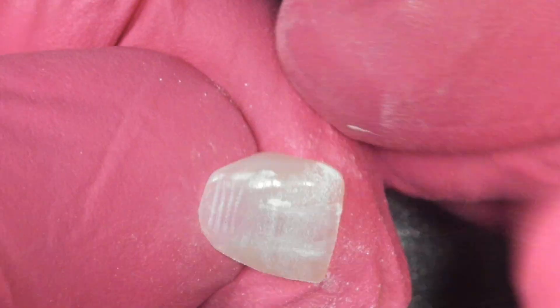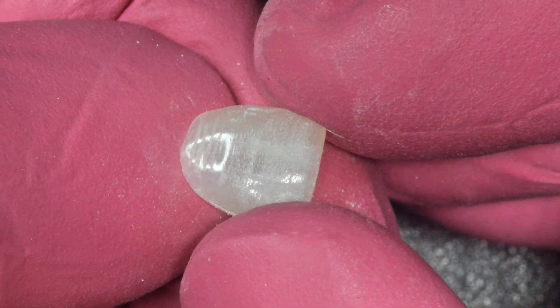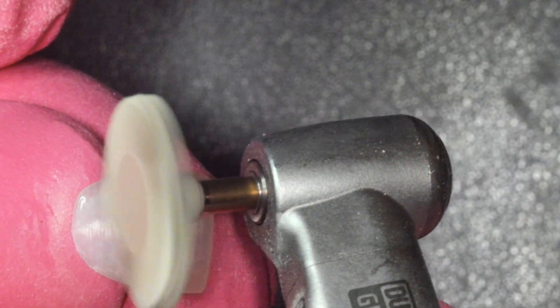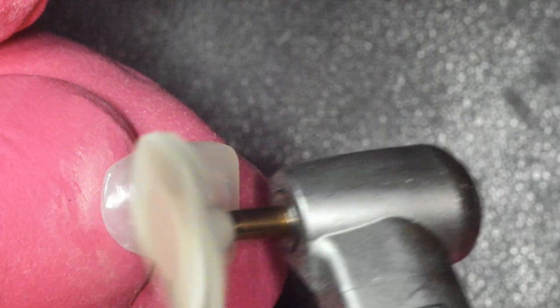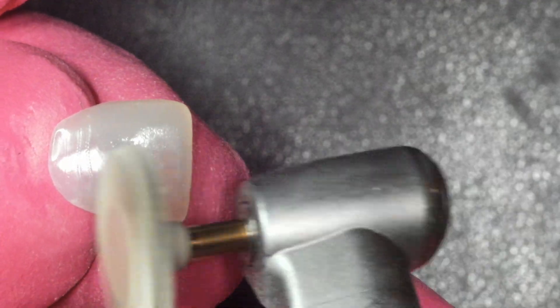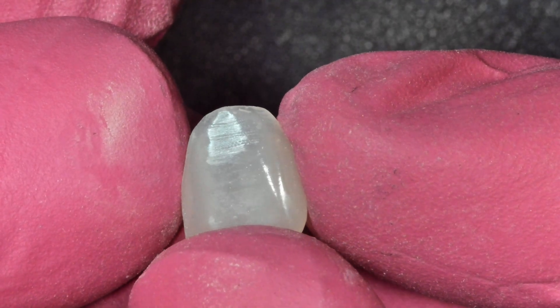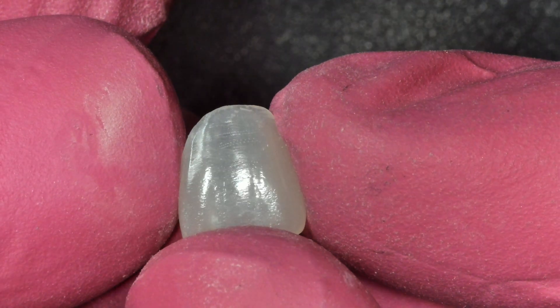However, with this material, what I'm finding is that after I add the texture and go back with even a single step like this and hit it, it's going to instantly bring it to an ultra high shine, yet maintain all the minute details that were added for the microtexturing.